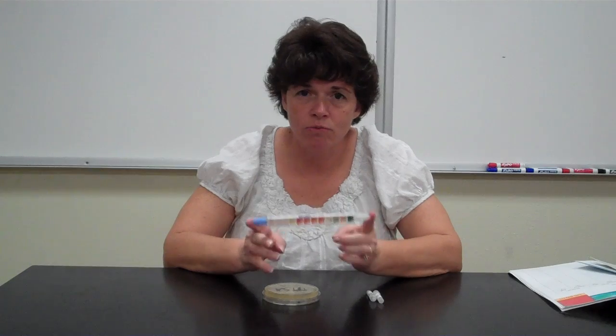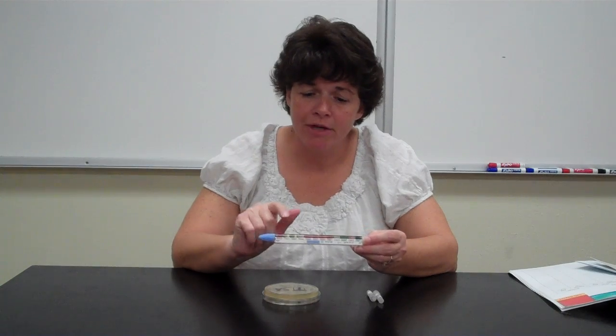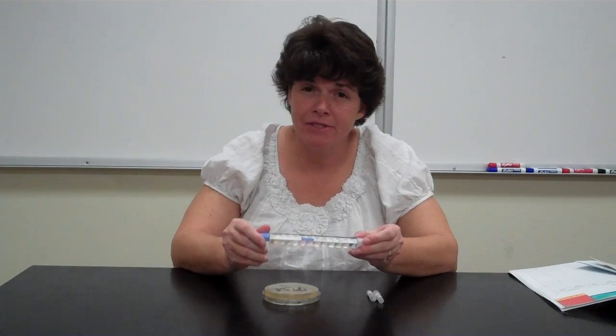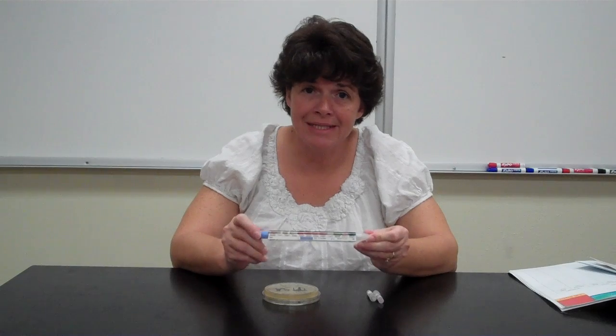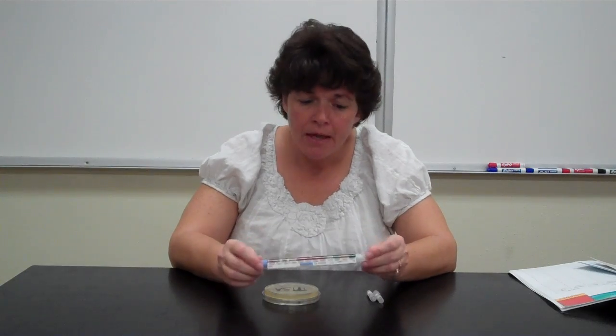This one tube allows the doctor to look at multiple reactions at one time. So we have fermentation reactions, we have the urea test, we have a citrate test that we haven't done yet. But with this one testing system, you can actually determine the exact cause of the symptoms.